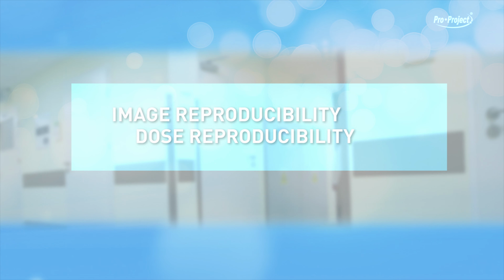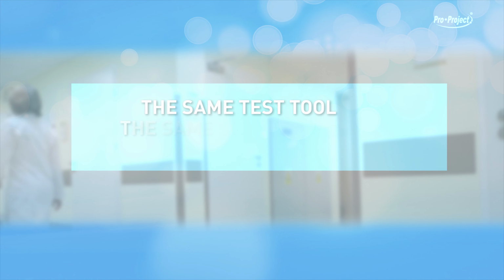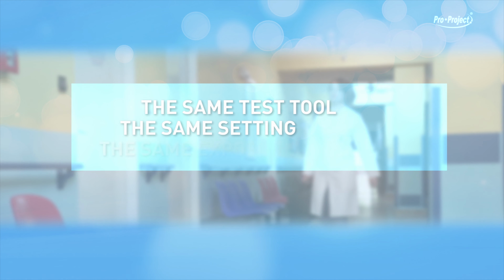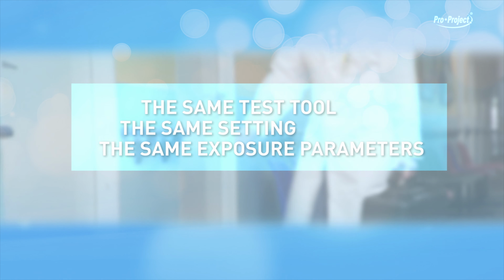Consistency checks are performed to evaluate the functioning stability in terms of image reproducibility and in terms of dose reproducibility. The check is obtained by using the same test tool, Phantom, at the same setting, position in relation to the device being tested, and at the same exposure parameters.